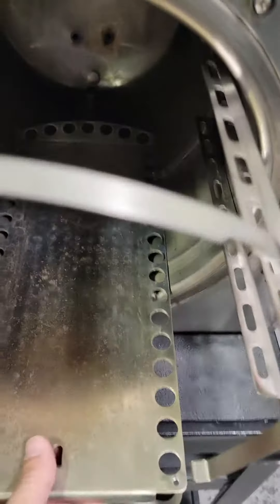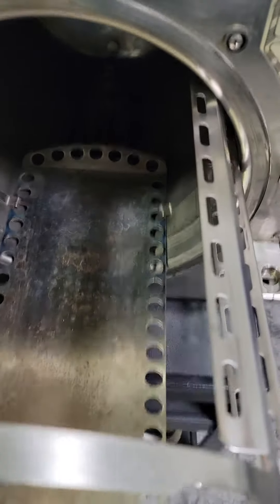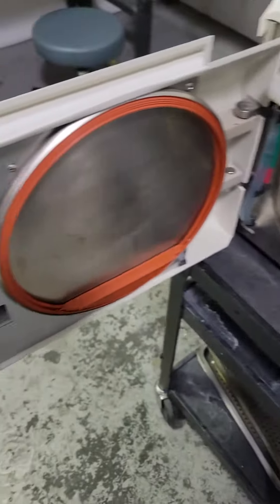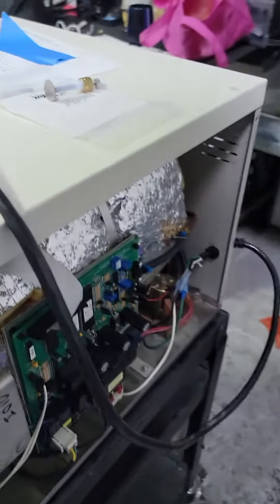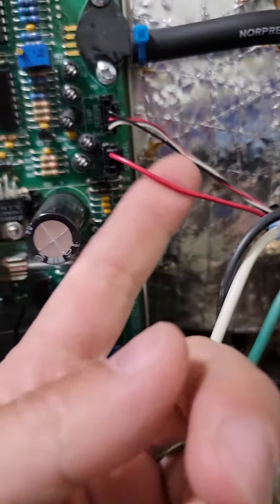How does the water level sensor work? Let's go to the water level sensor. Underneath your rack, pull that whole thing out. Inside your chamber, right there, this is your water level sensor. If this gets dirty, what does it do? So the way the water level sensor works is, the water comes into your unit, properly leveled hopefully. When the water touches this, it's creating continuity — closing a circuit — between this disc and the metal of your chamber. There's a single wire on the back that comes all the way over here onto your board.